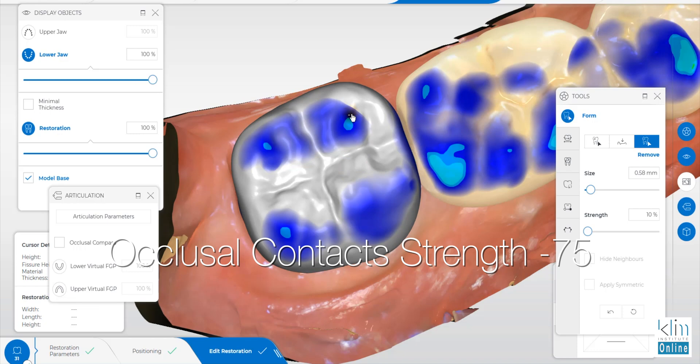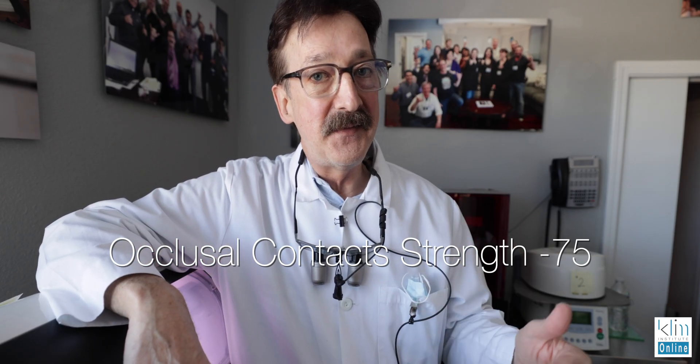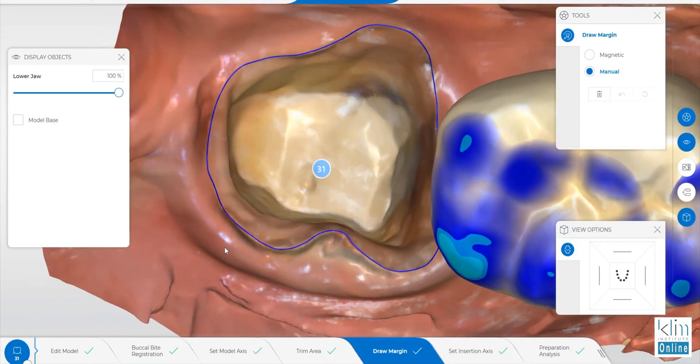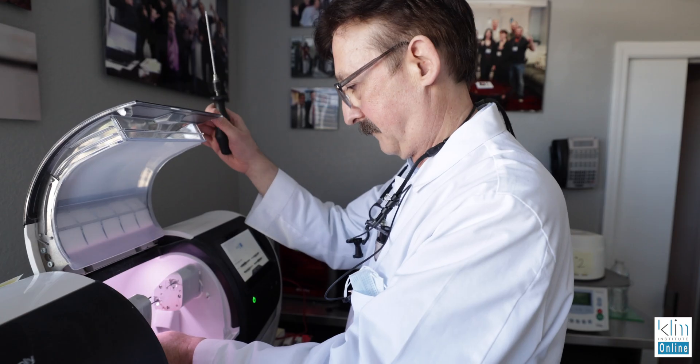The parameters I use approximately would be aqua with a little green, and then on the occlusal table it's a very slight aqua, which is negative 75. I have found there's almost no adjusting using this approach. My workflow once I'm in the software is to make sure I have clean margins — with the Prime Scan it's really easy to get those clean margins — and then once we propose, if you need to change marginal thickness, now's the time to do it, otherwise there'll be a re-proposal.